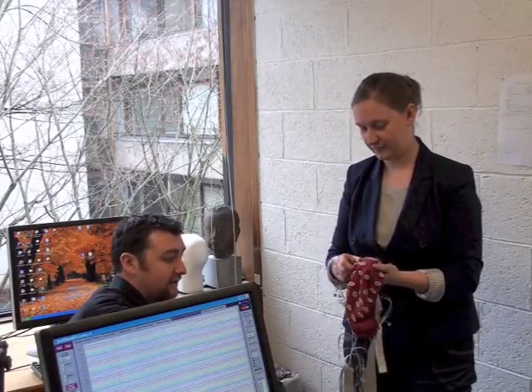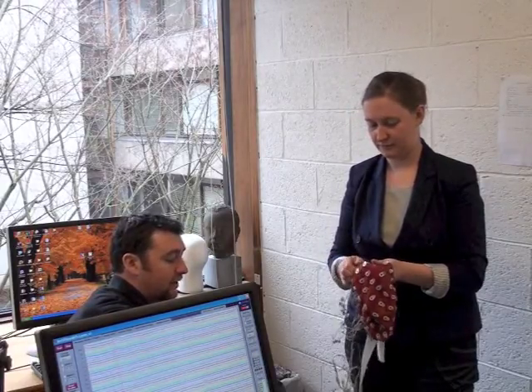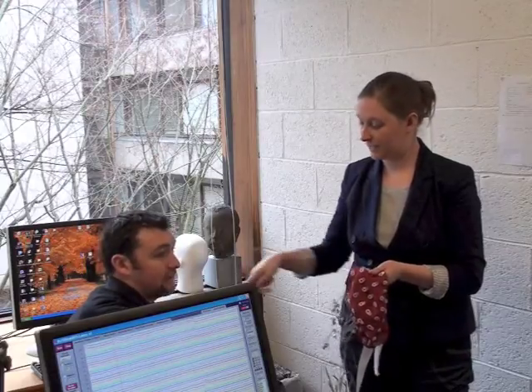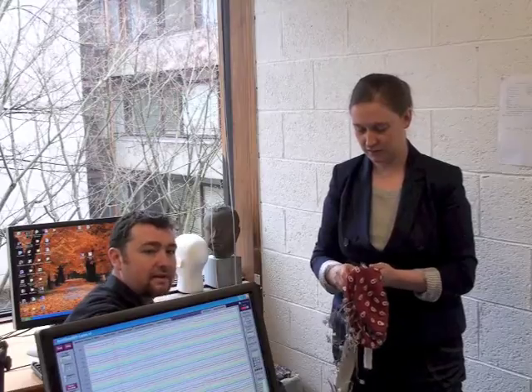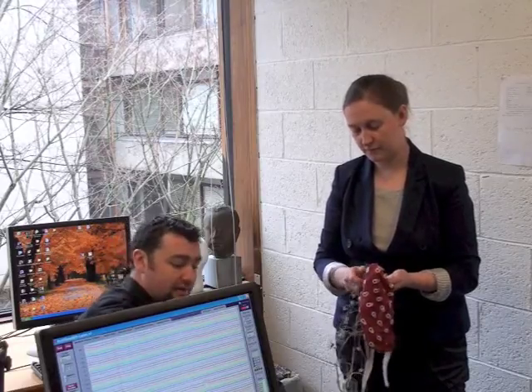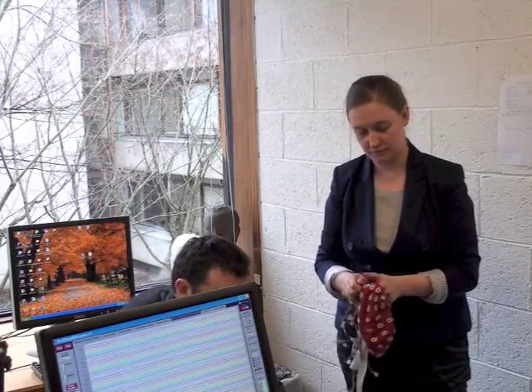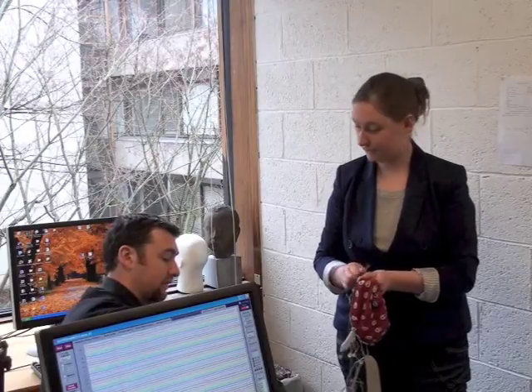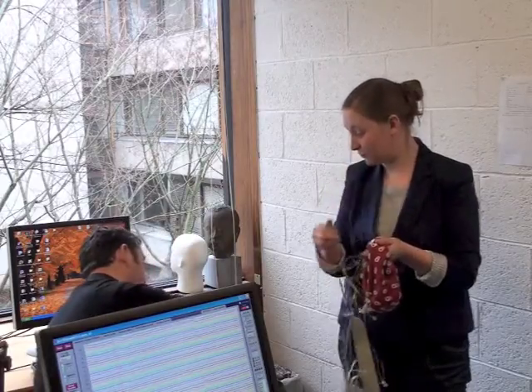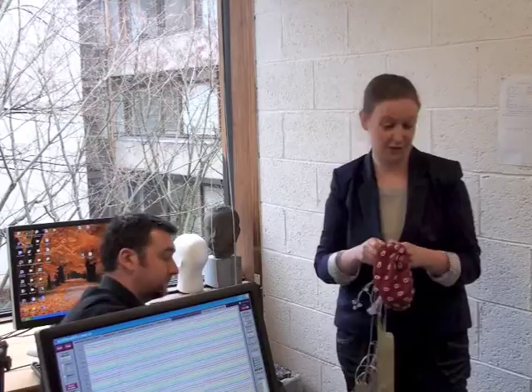There's very little difference. It's just where you place the electrodes. They're all flat electrodes, aren't they? Yeah, and maybe we could do that at a different time, maybe with heart rate, temperature and all. But it's very similar. You just have connections that go here, and where these go is just different, and it doesn't have the cap. So you wouldn't have these pluggy ones, but they're just flat instead. They're all the same type of active electrode.